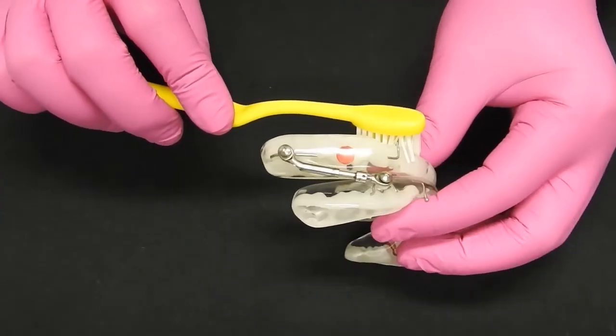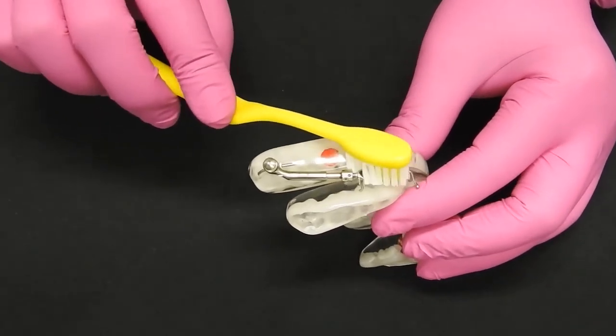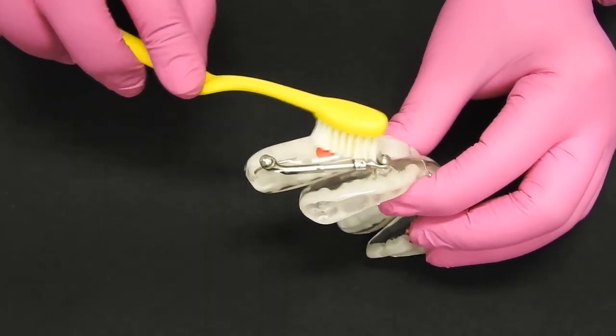Then move to the outside and brush all metal parts.